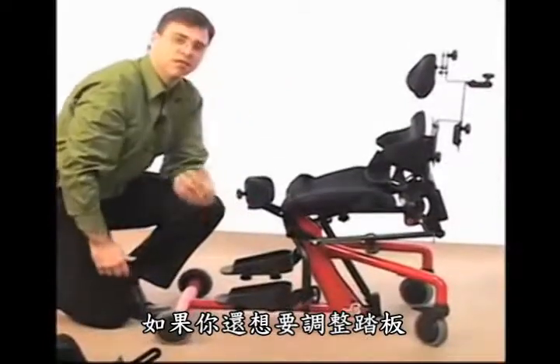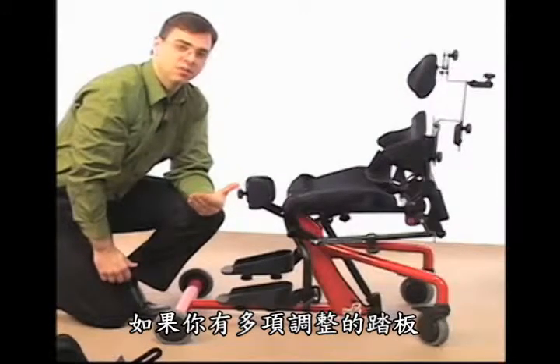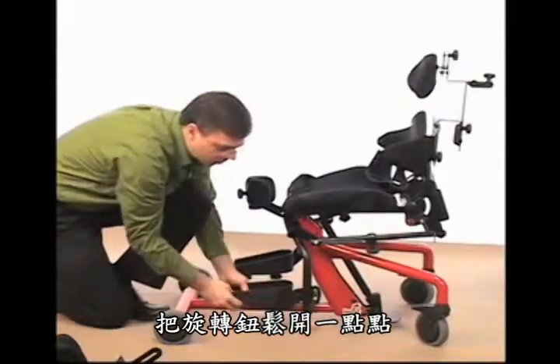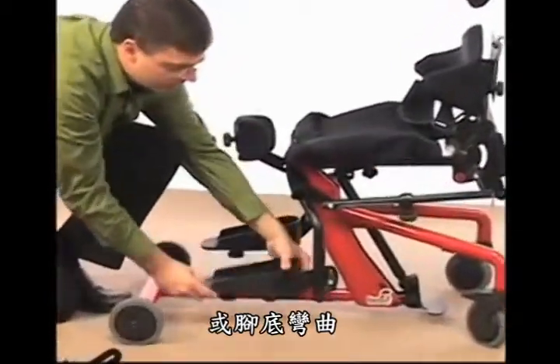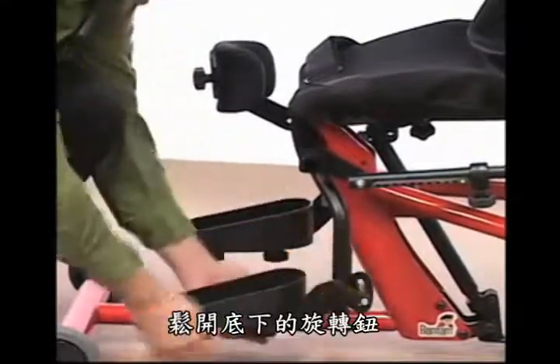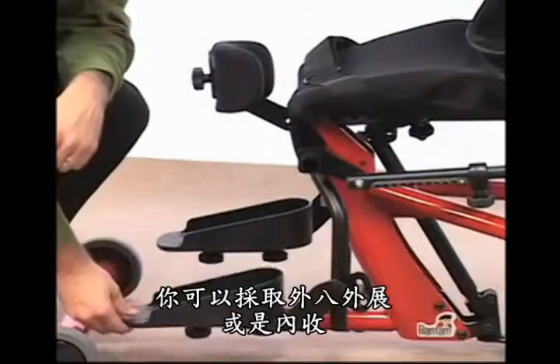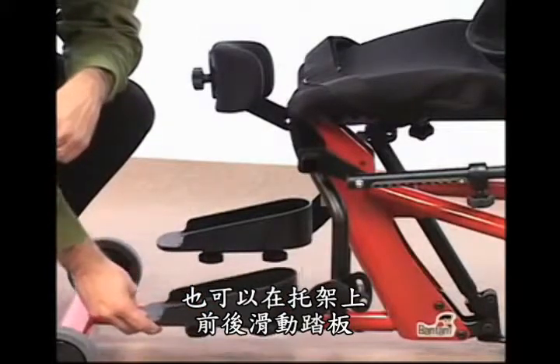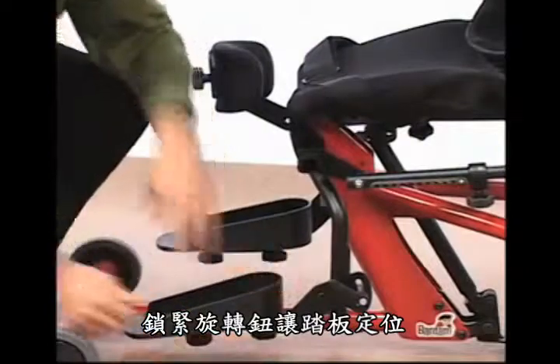In addition, if you want more adjustment of the foot plates, you can order the multi-adjust foot plates. With multi-adjust foot plates, by loosening the knob a little more, you also have the ability to adjust for dorsiflexion or plantarflexion. By loosening the knobs underneath on the multi-adjust foot plates, you can also get toe adduction or abduction. You can also slide the foot plate forward or backwards on the additional multi-adjust bracket. Once the desired position has been achieved, tighten the knobs to lock the foot plate in position.